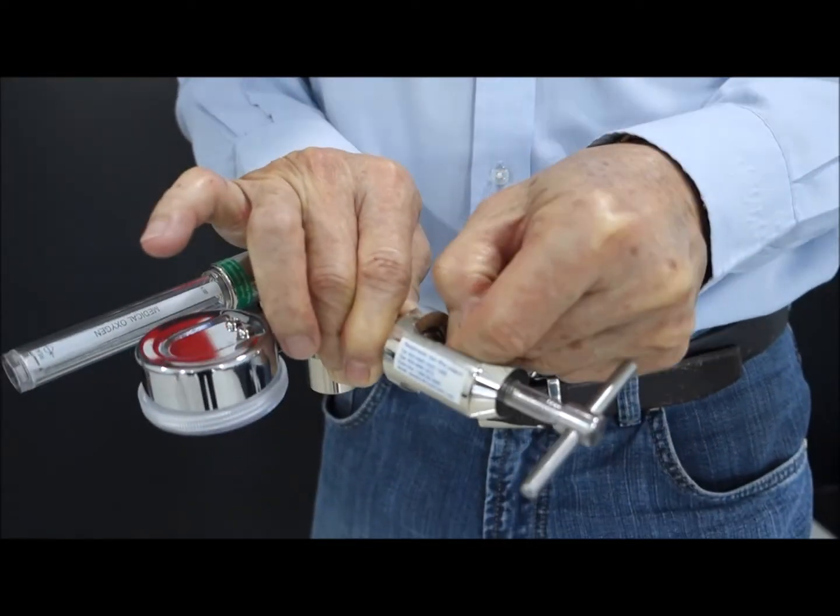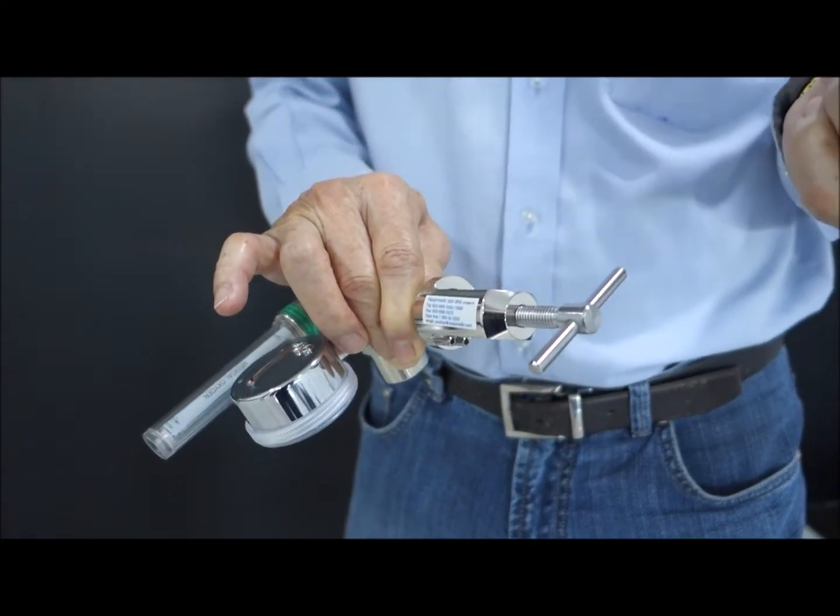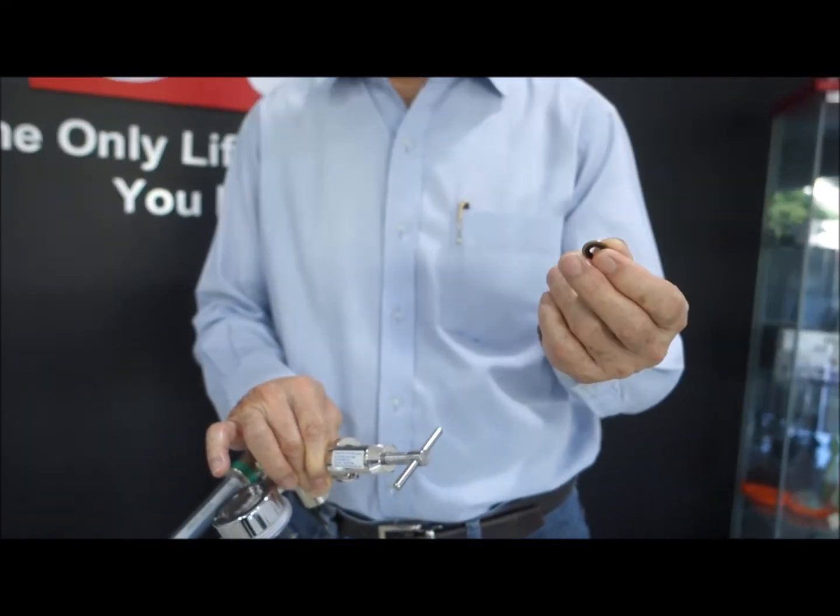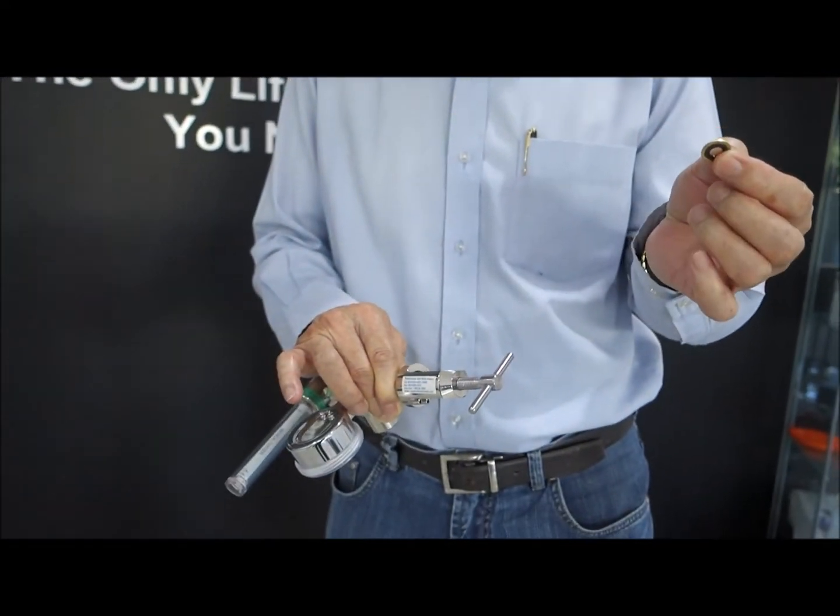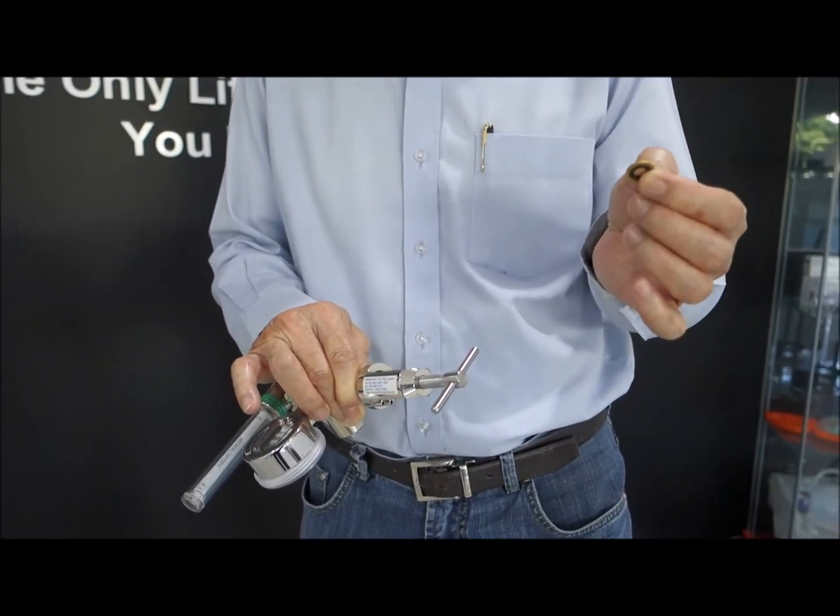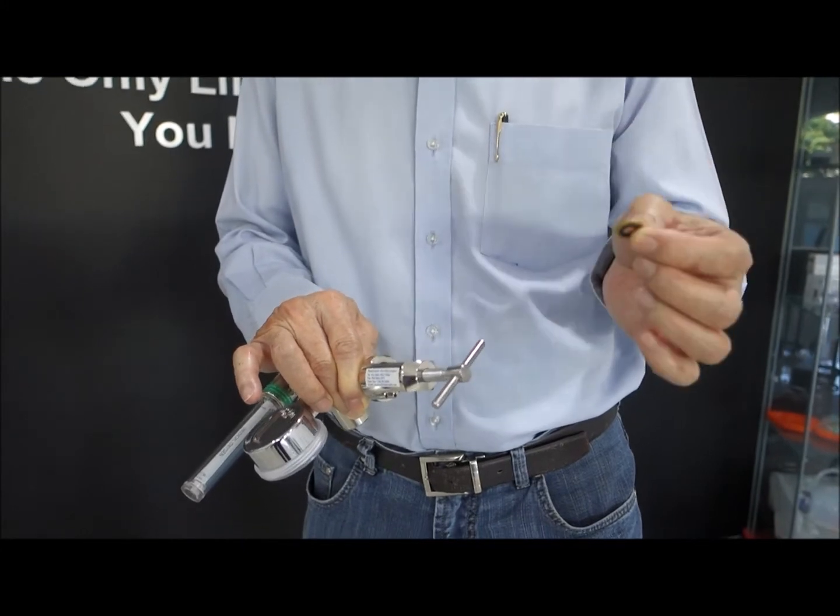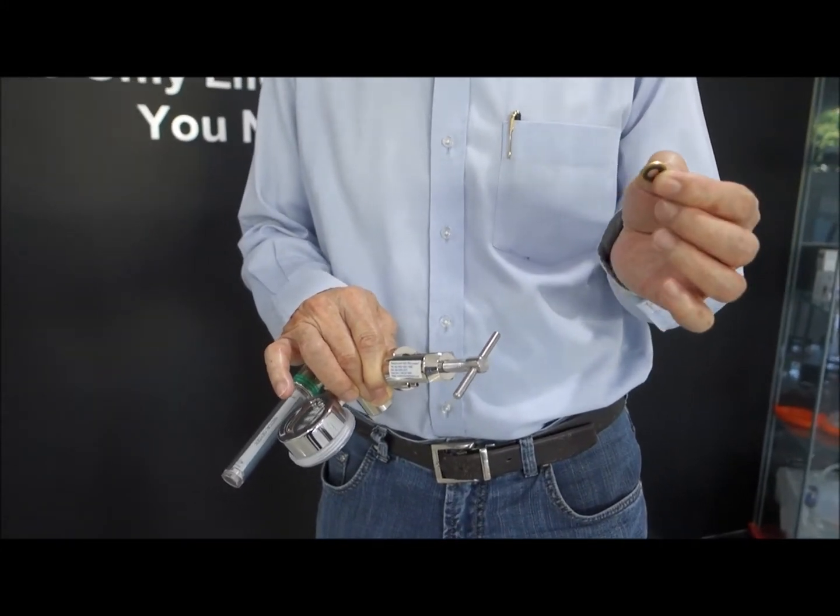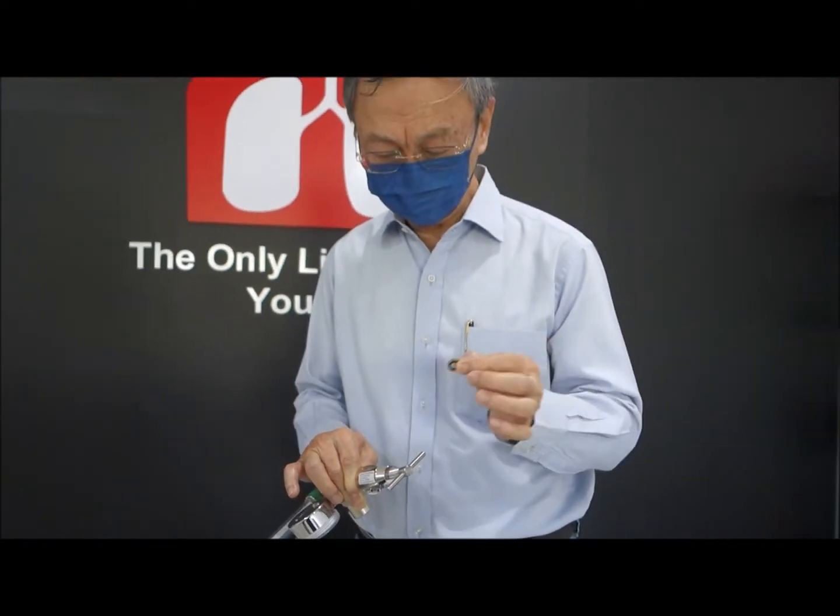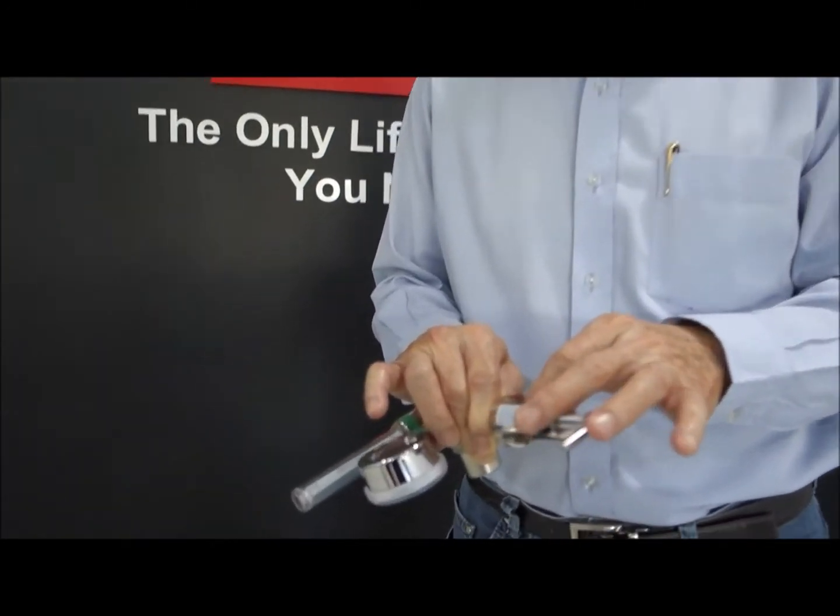If you lose the seal, if there's no bonded seal, then you cannot. This is a very reliable, reusable seal. It should last you for many, many months or even years in use. If you lose this, then make sure you get a proper replacement. Don't use any other type of seal.